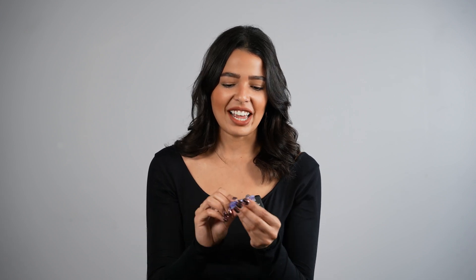This process is just so easy to do. The number one benefit of 3D printing in general is the time — it's so much quicker, easier, and a lot more cost-effective. How long do you have to wait for a milled denture to get made? You also have tons of different shade options to work with so that you can have it match perfectly. Definitely simpler than milling. You've got all the materials in-house. Anything goes wrong, you can just reprint it quickly without sending it back to a lab.